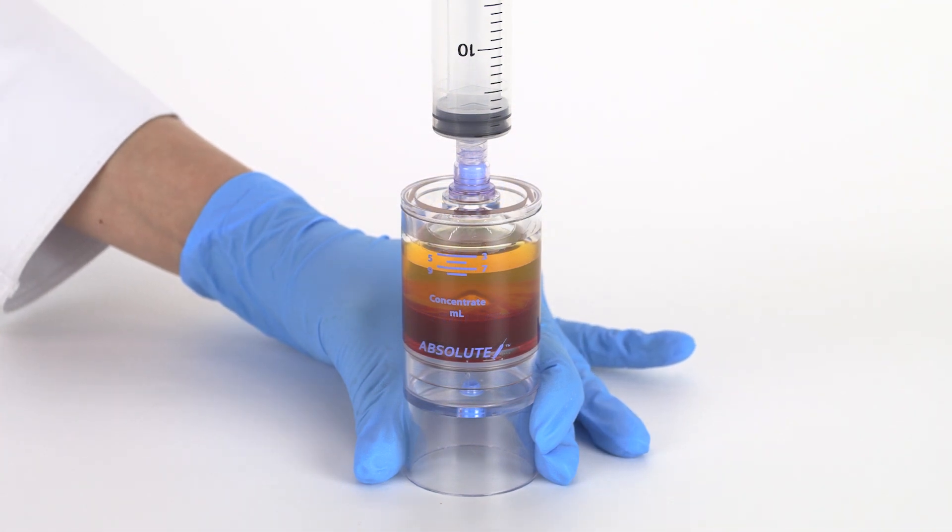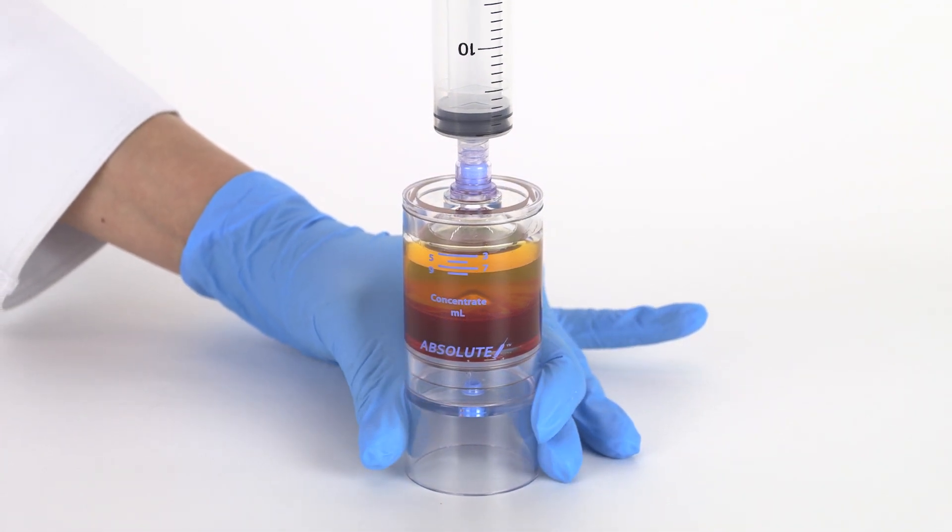Attach the sterile 30-milliliter syringe to the needleless port and aspirate the plasma.